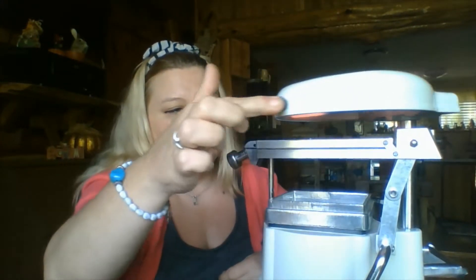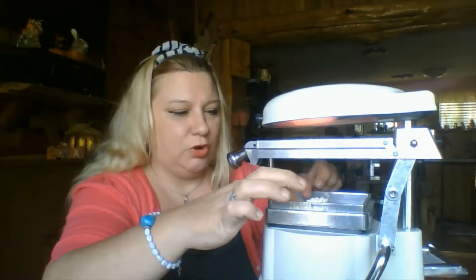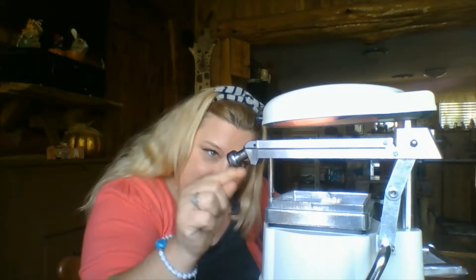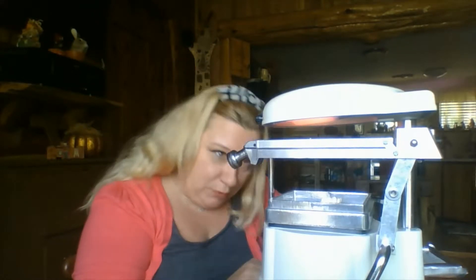This one you go up like that. Now you're going to slide this over so it starts to heat the plastic. I'm going to take my model of my lower teeth, which is a horseshoe shape. You want to trim it on a trimming wheel. I'm going to wait — I call it waiting for a little belly. There's a little belly that comes down. If you let it hang too far down, you'll get extra plastic in the anterior region and it will be rough on the patient's lip. Plus it will make it too thin. Not enough of a belly and it's not going to vacuum form completely.